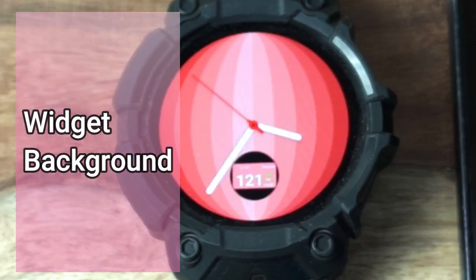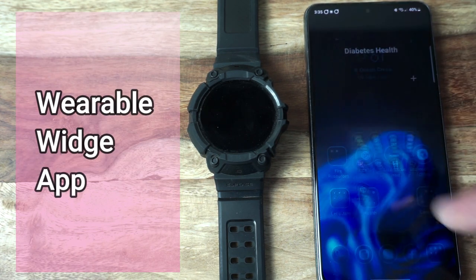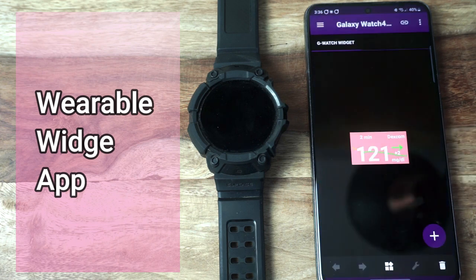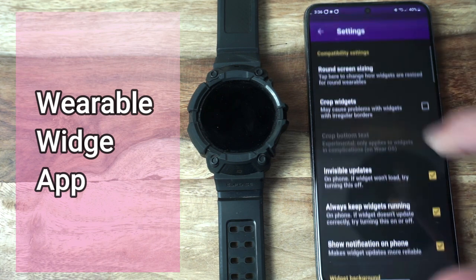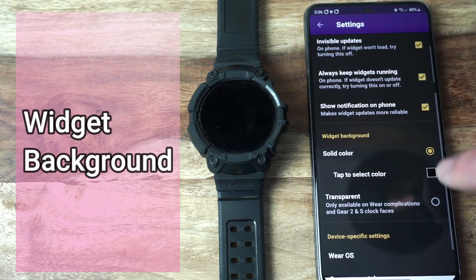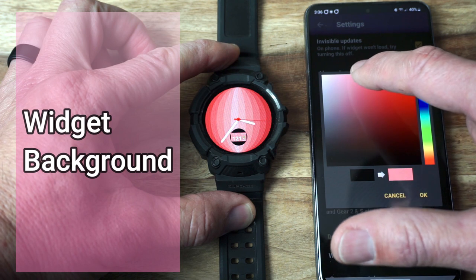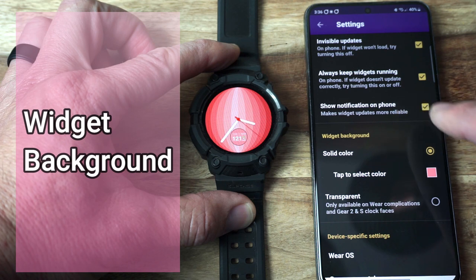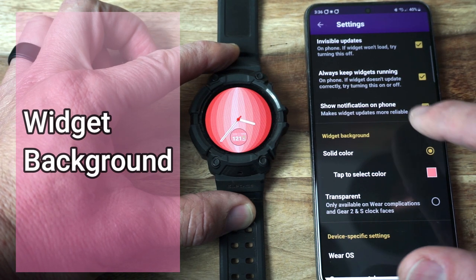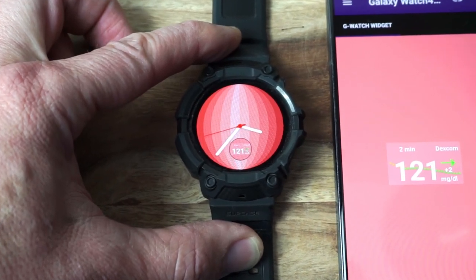This one looks pretty good. Now there is a black square just behind it — don't worry about that, we're going to change that in a second. Let's get out of this app and open up the Wearable Widget app. Hit the hamburger in the upper left corner and go to Settings. Now scroll down to Widget Background and open up your watch face for a color reference. Then try to do your best to match that color. Select Refresh Device. And there you have it — a custom themed animated watch face with your CGM values as complications.